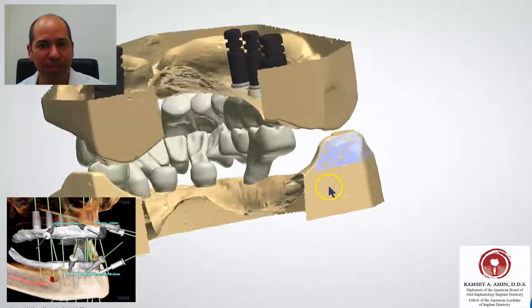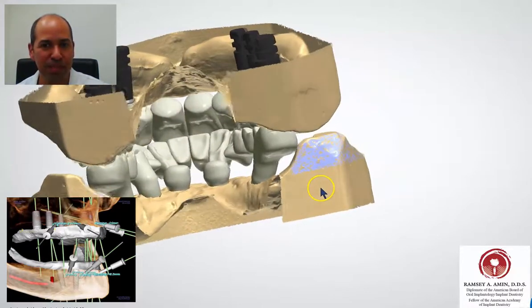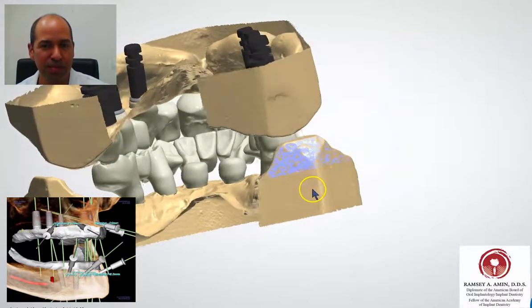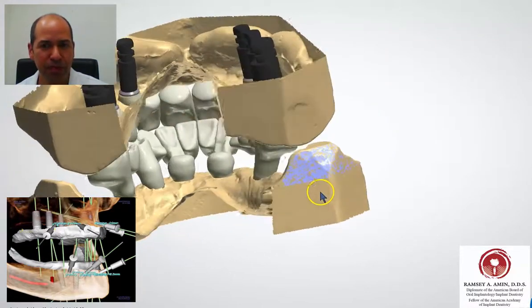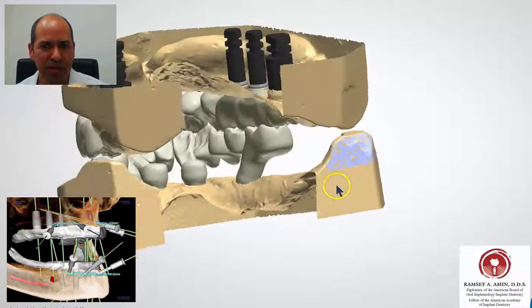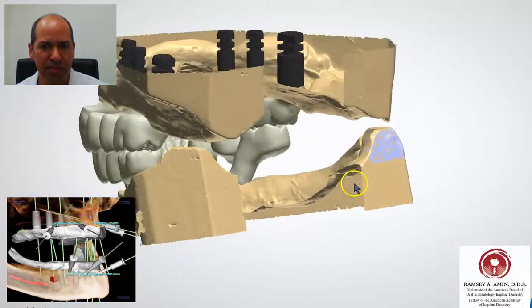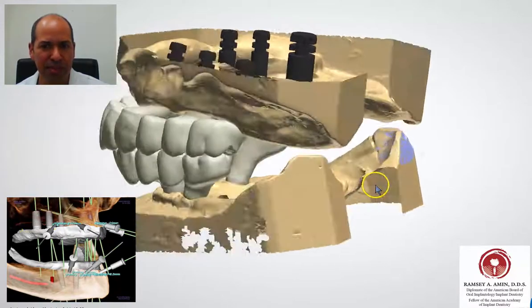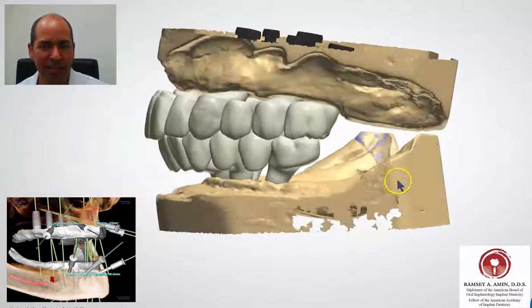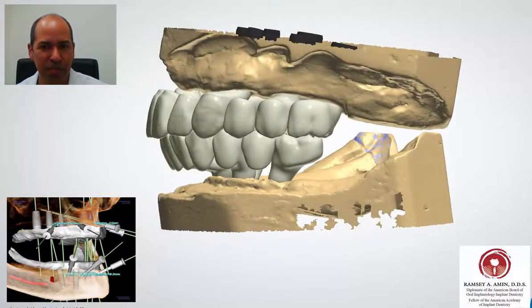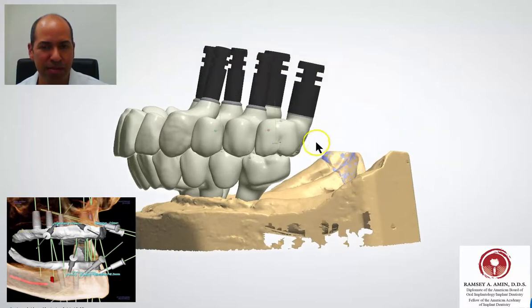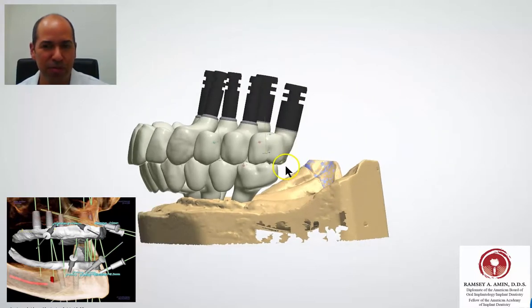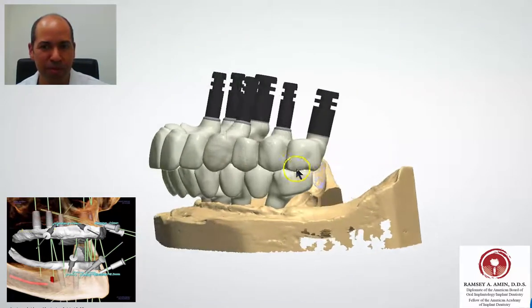Upper and lower — there are 6 implants in the upper, which you can see by those black little posts representing the implants. They're placed in the back of the jaw on the upper. She had bilateral sinus grafts and has no bone in the front of her mouth under the nose.